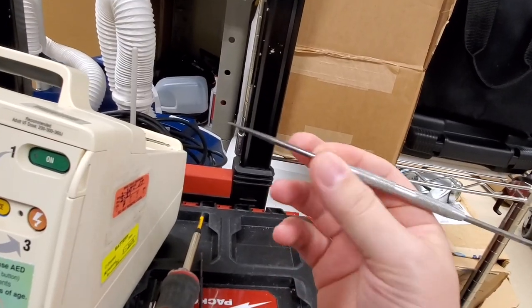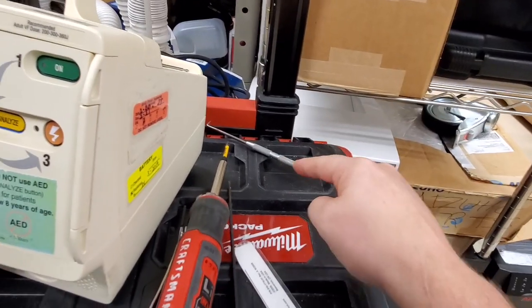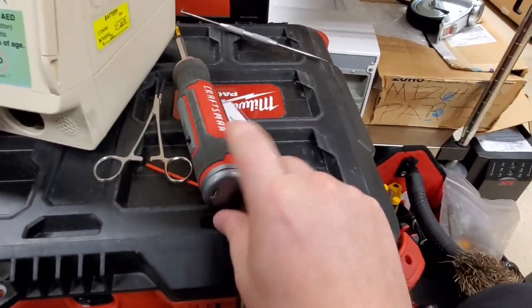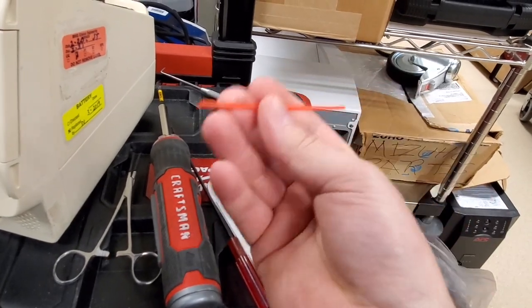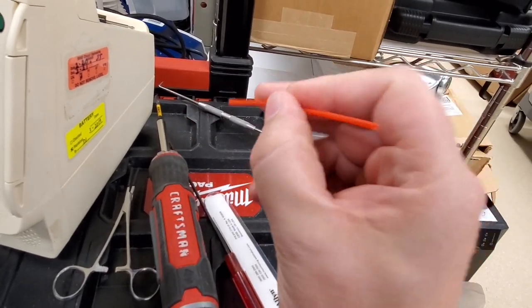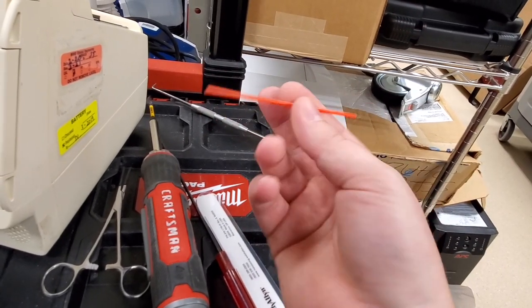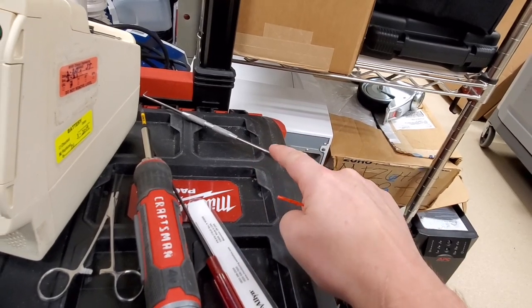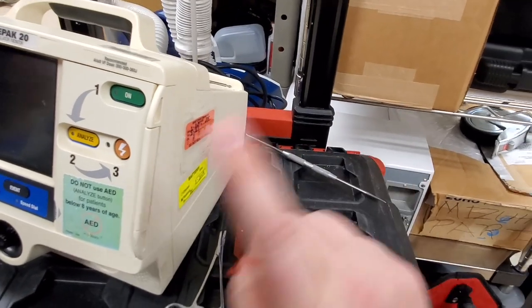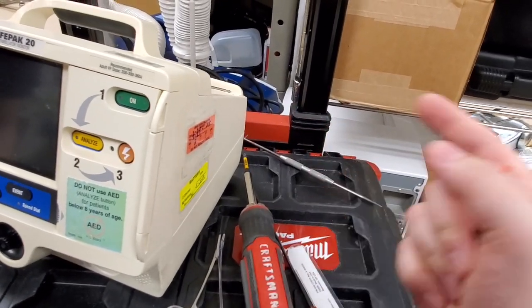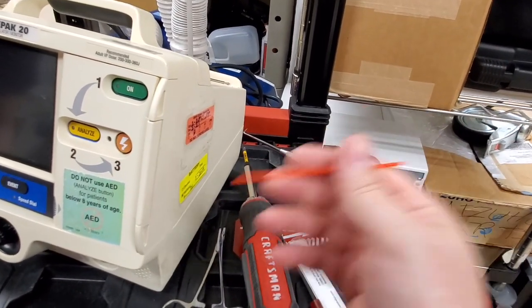I have a metal pokey thing. You never know when you can use it. We're just going to set it off to the side. I might need that if this guy right here doesn't suffice. This looks like a coffee stir. We're going to use this for poking and prodding to make sure everything is in position before we fully seat the coin cell. We don't want to use a metal object in there because there's going to be power on the capacitor. I'm not suggesting you do what I'm doing right now. Go ahead, discharge the capacitor, do what you want to do. But I'm going to show you we're going to avoid all that and change out this coin cell with very easy tools.